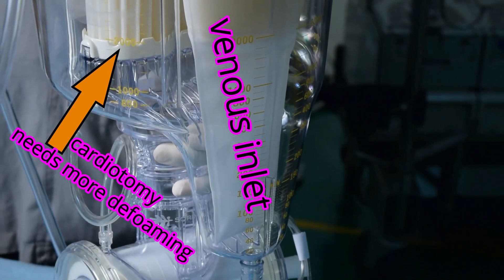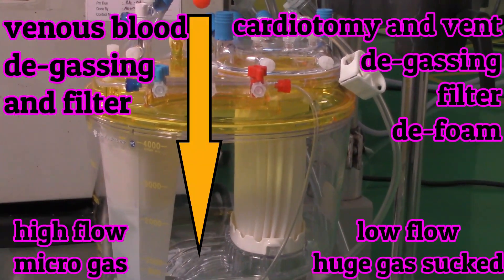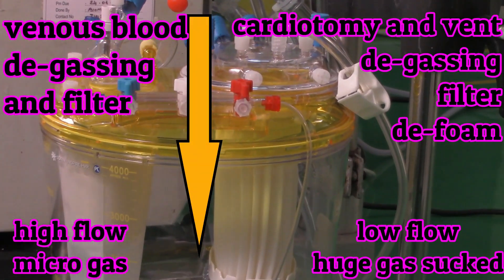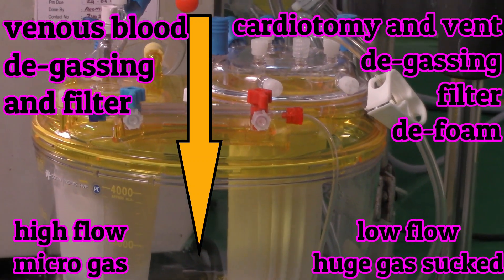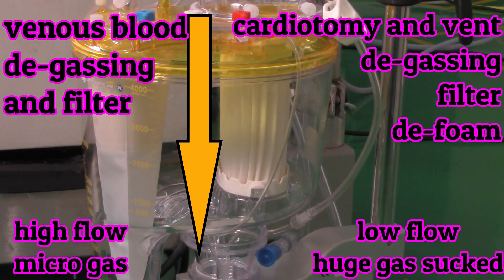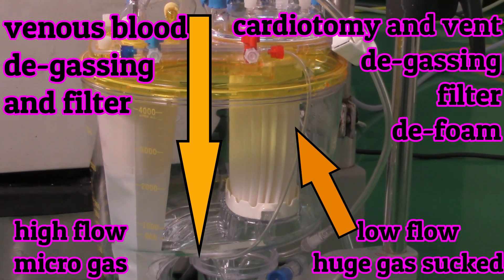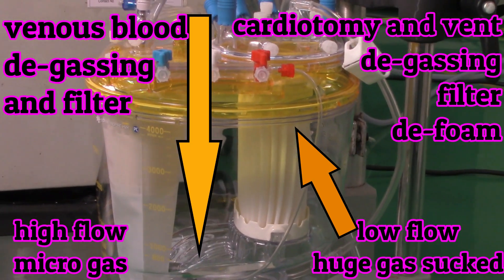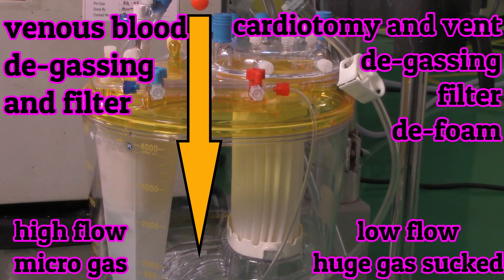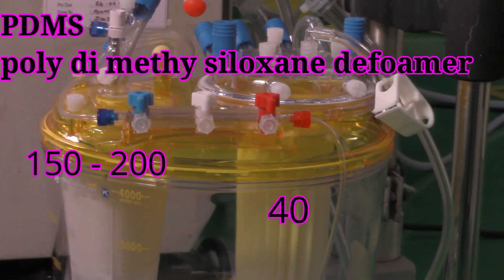Cardiotomy blood recovered by suction from the surgical field has a low flow rate and is heavily aerated — that is, foamy — and contains a substantial amount of cell and surgical debris. Therefore, cardiotomy blood has to undergo considerable defoaming and filtering before being reused in the systemic circuit.